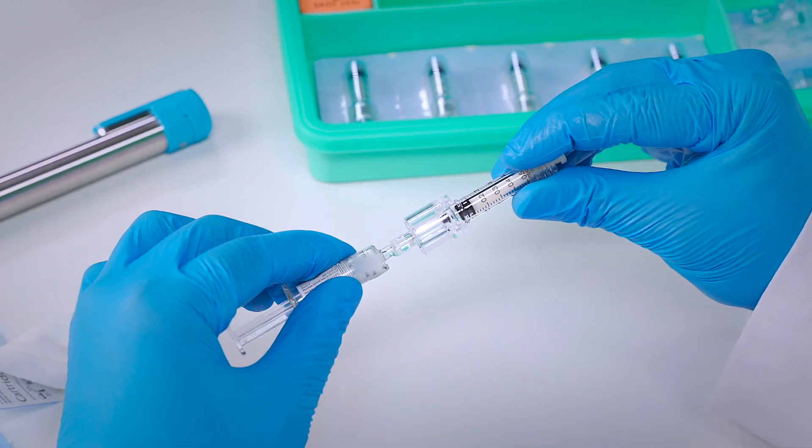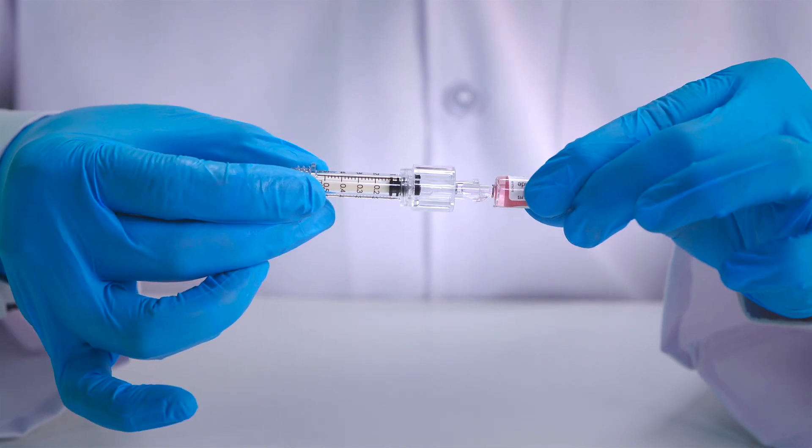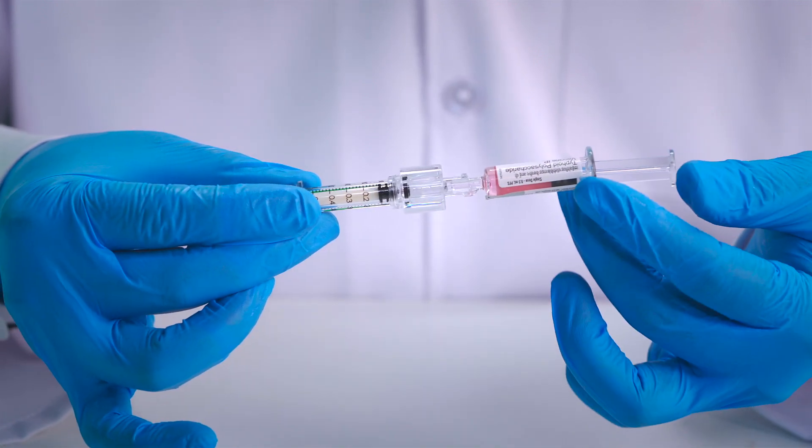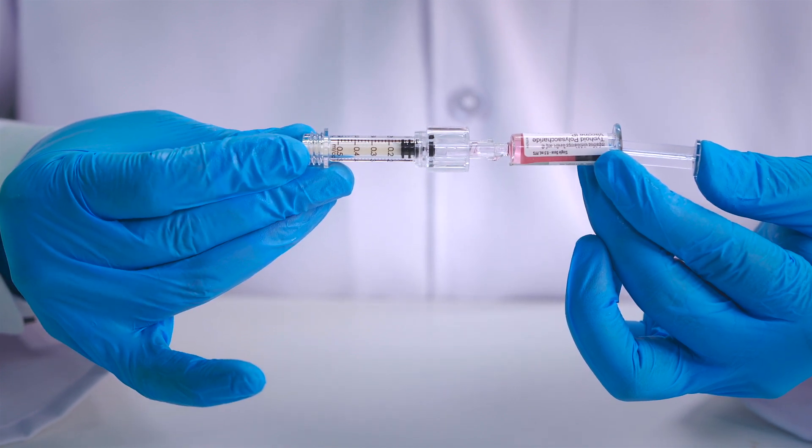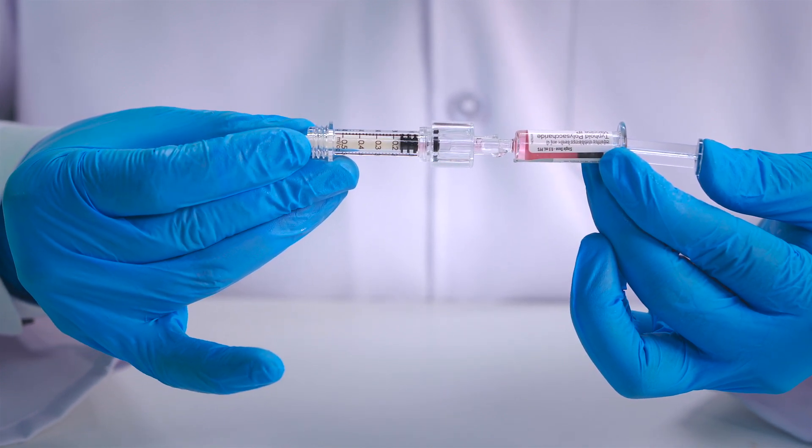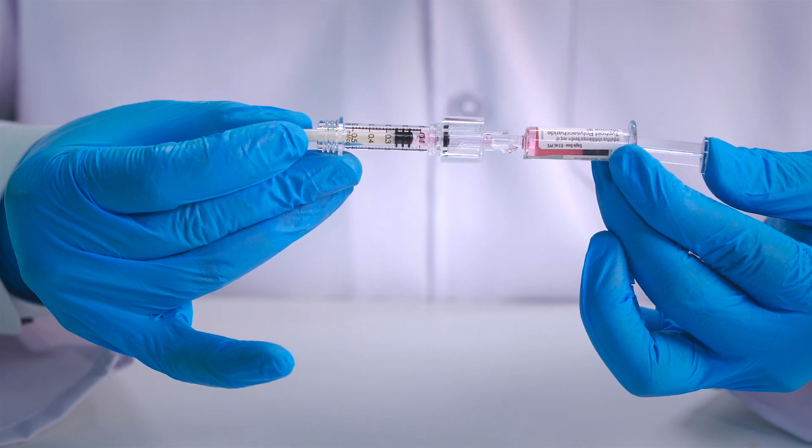Attach the cartridge tip on the other end of the adapter by turning clockwise until secure. Push the plunger of the medicinal pre-filled syringe to transfer the entire medicine into the cartridge.